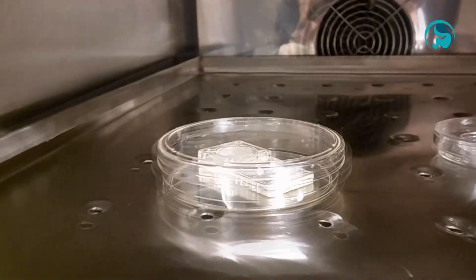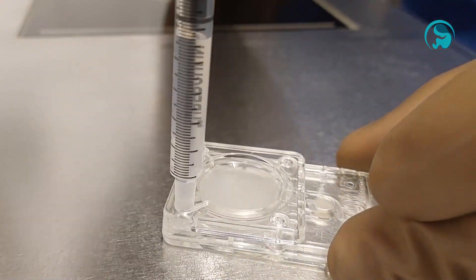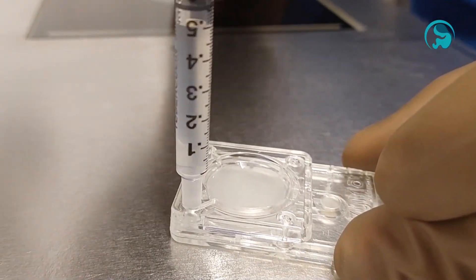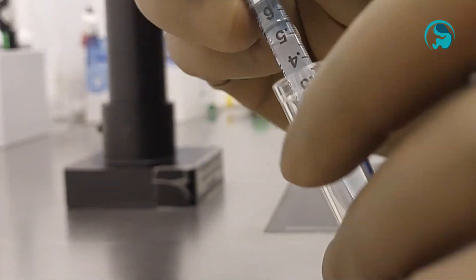After 30 minutes, the device is taken out of the incubator and highly motile concentration of selected sperm is then extracted from the designated port on the device. The extracted sample is then stored in a test tube for later use in either IUI, IVF or ICSI procedure.